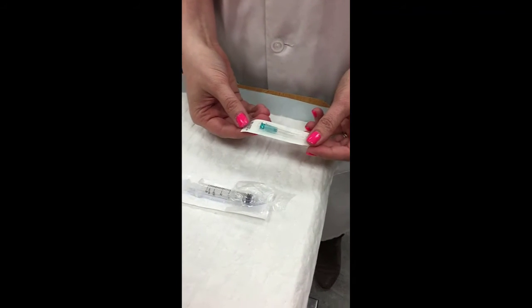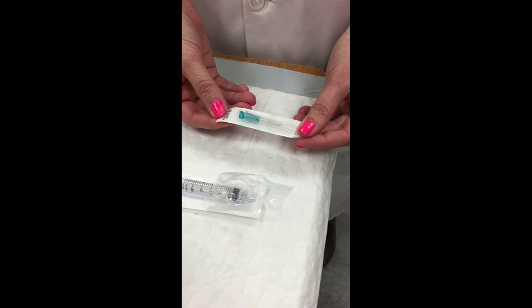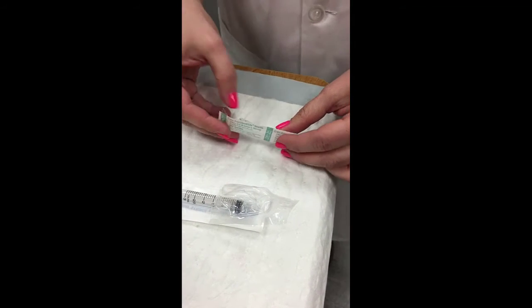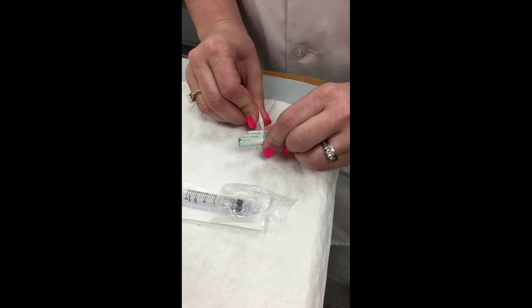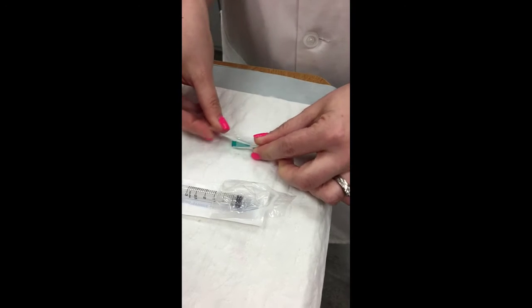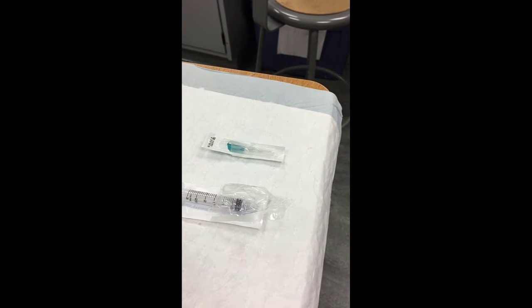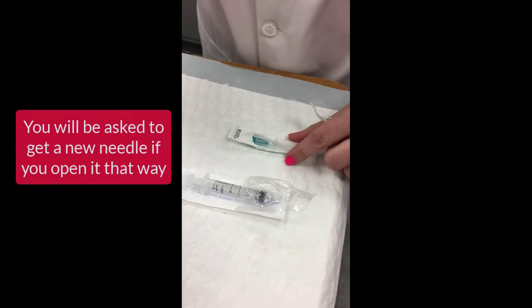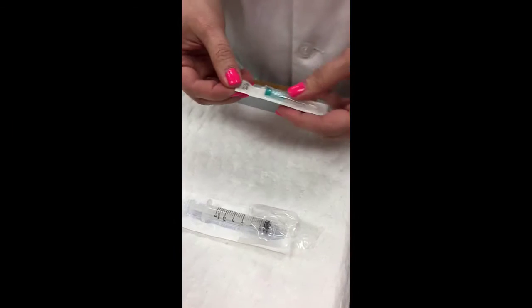And now with my needle, what you want to do is you do not want to ever push the needle through the package, as what that will do is it cannot be sterile after breaking it through the package like that. You must open the package sterilely.